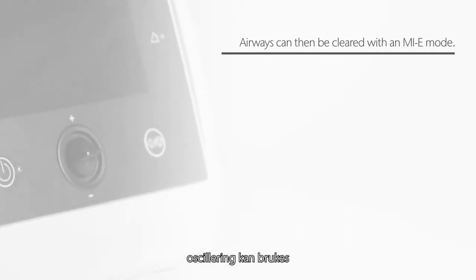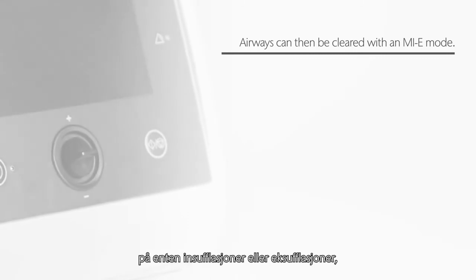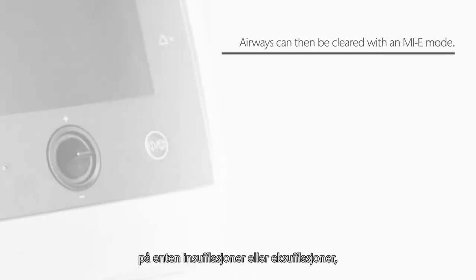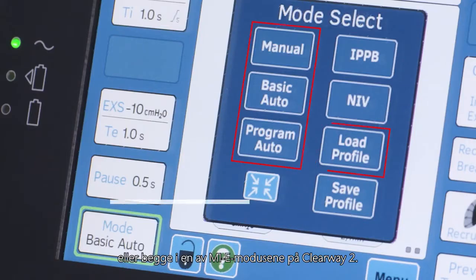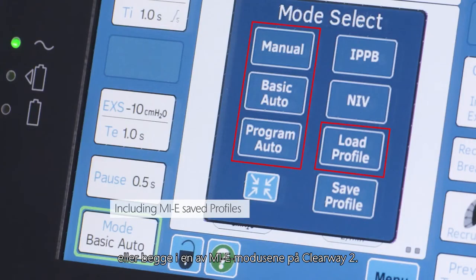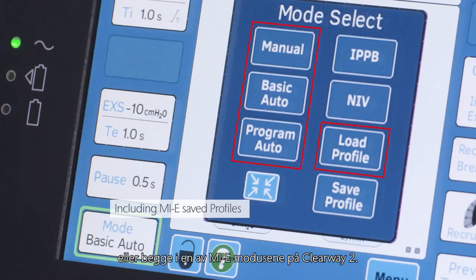Oscillations can be applied to either insufflations or exsufflations, or both, in any of the MIE modes on the Clearway 2.